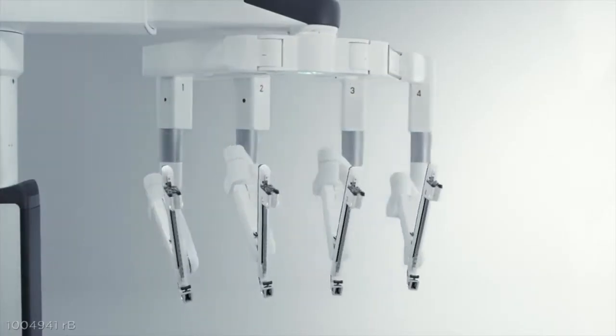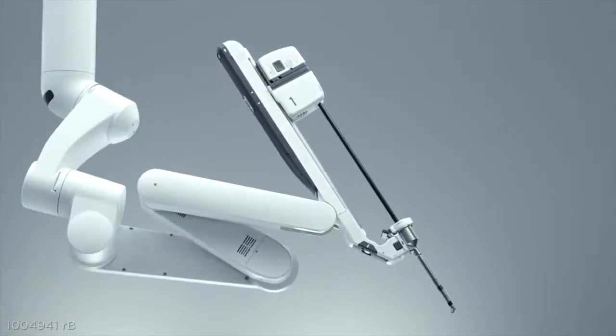This is all enabled by smaller, lighter arms with extended range of motion and improved reach inside the body.